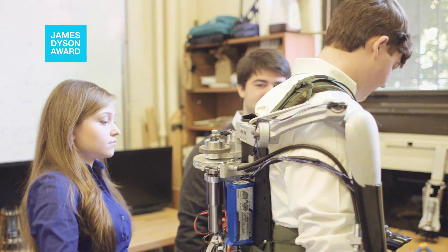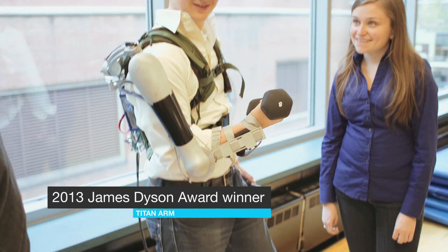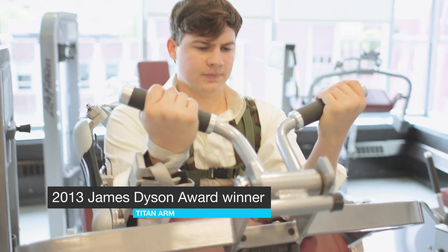The Titan Arm is a powered upper body exoskeleton with two use cases: occupational lifting and physical therapy.